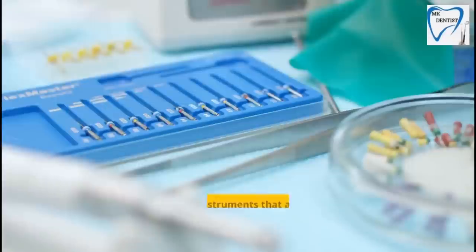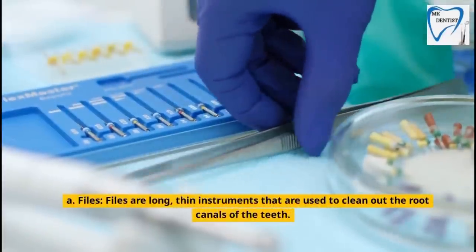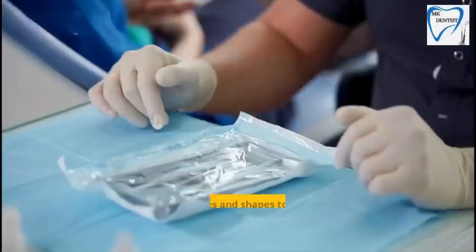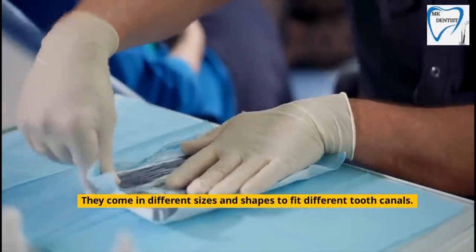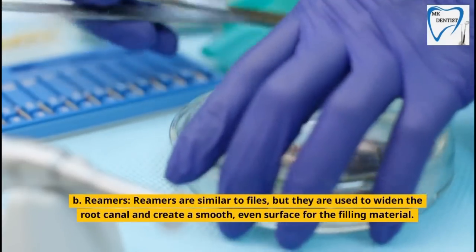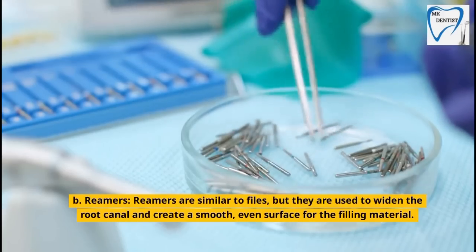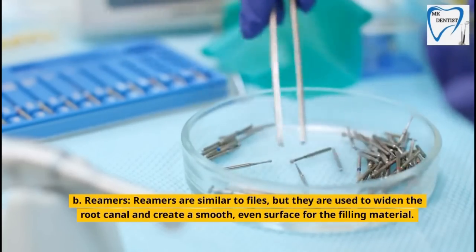Endodontic Instruments. A. Files — Files are long, thin instruments that are used to clean out the root canals of the teeth. They come in different sizes and shapes to fit different tooth canals. B. Reamers — Reamers are similar to files, but they are used to widen the root canal and create a smooth, even surface for the filling material.